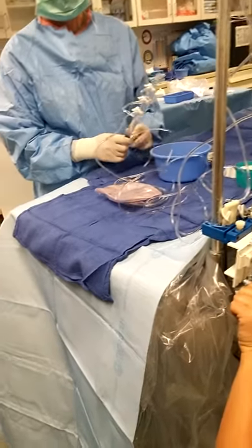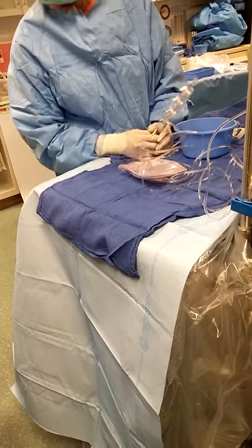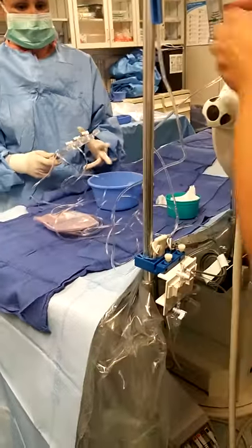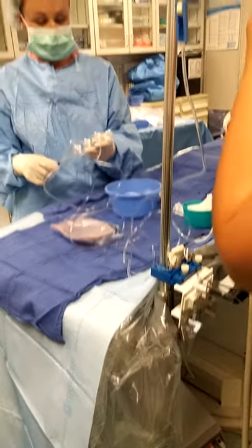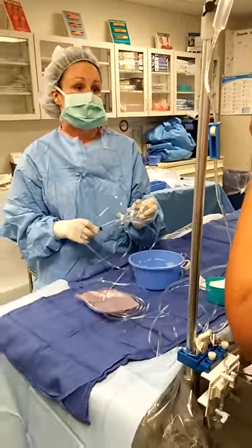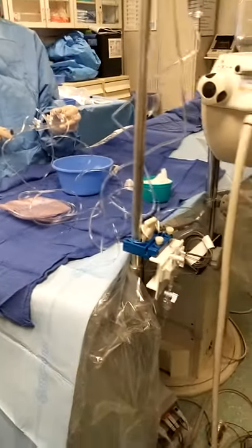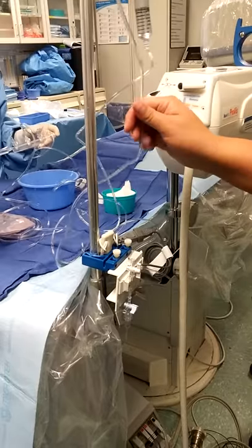Do you want me to keep it off or open it? That's the way it goes — you want a straight line. Like Tina said, you can take it off the plate; you don't have to feel like it's glued to that. But now I'm going to flush towards you, so you've got to keep your eyes on that piece so you can tell me if I'm sending you any air. Oh right here — you handed off the pressure here.